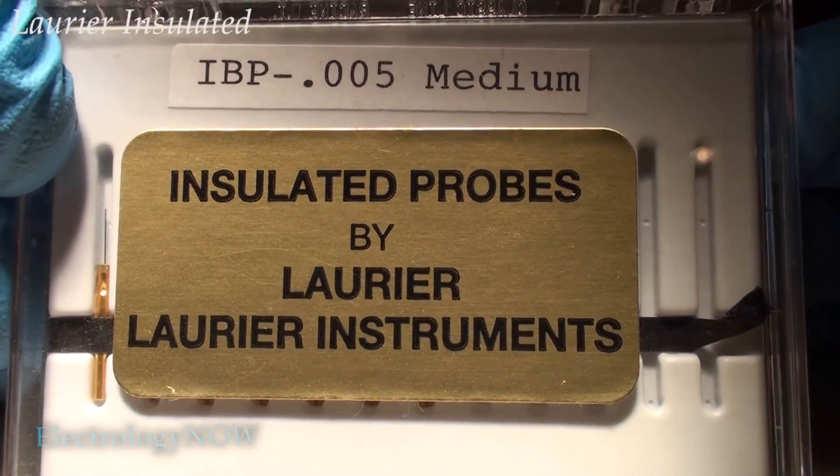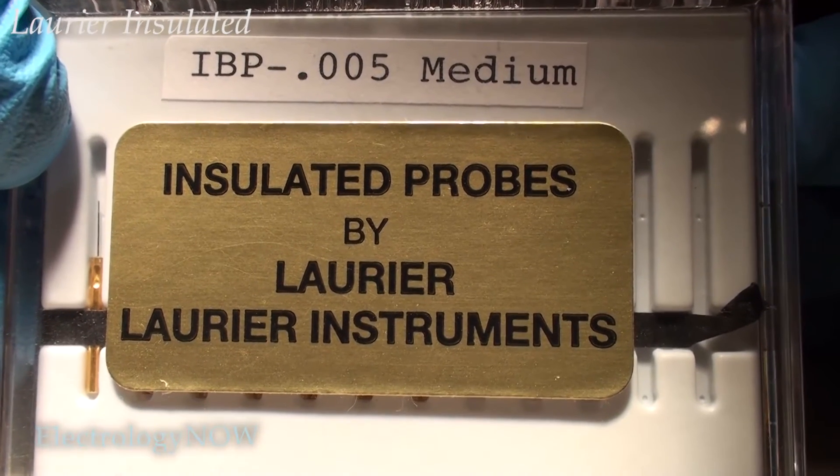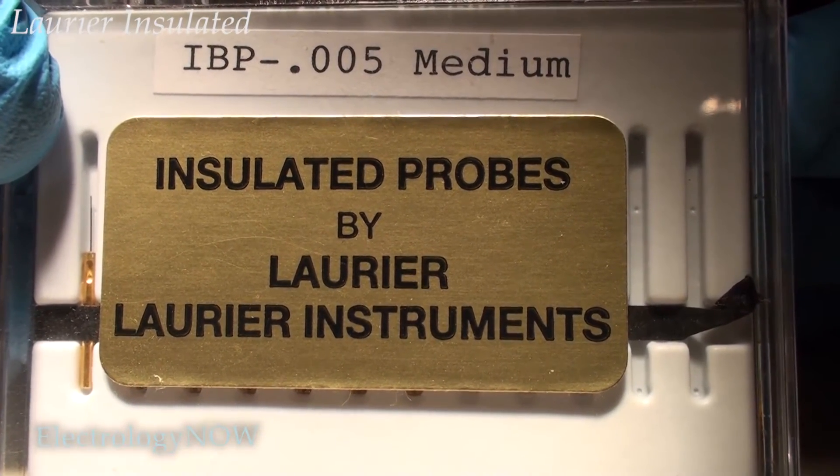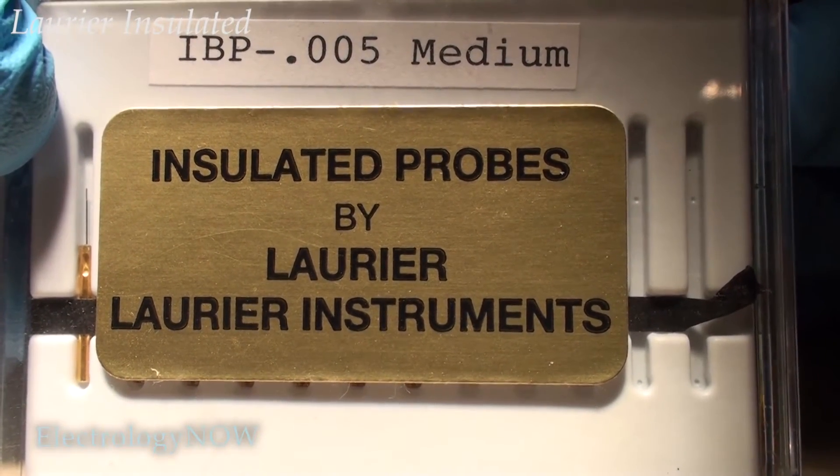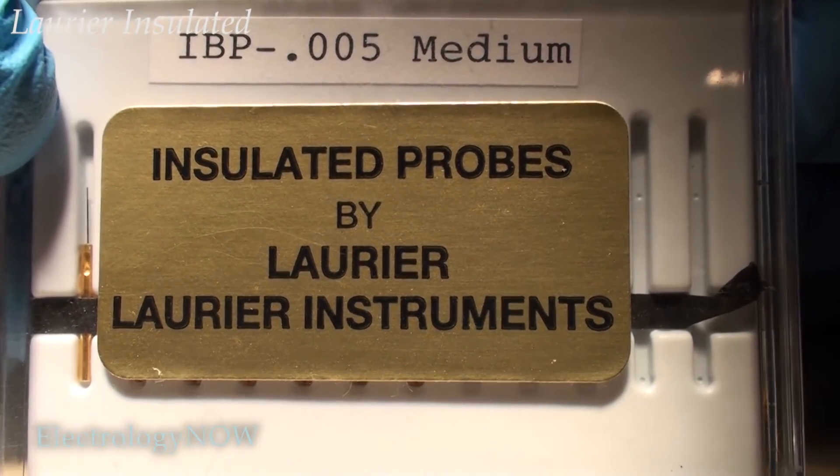Manufactured in the United States, the Laurier insulated probes are very popular and they're a really good needle. They're especially good with any of the thermolysis modalities.